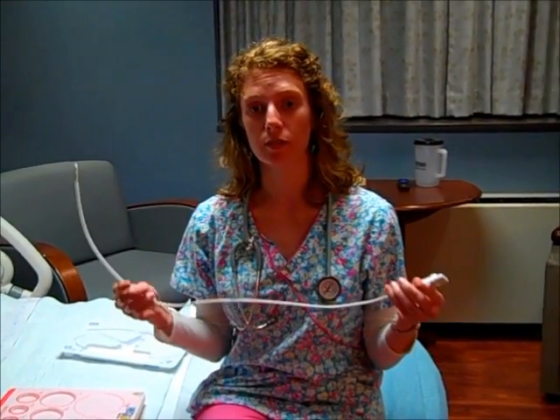Another internal monitoring tool is an IUPC, which stands for an intrauterine pressure catheter. And this is going to be an internal tool to measure contractions. So remember how I said when you saw them externally on that monitor, you can see the frequency and you can see the duration, but you don't know the exact measurement. Well, there might be some cases where you want to know if your patient's contractions are adequate.